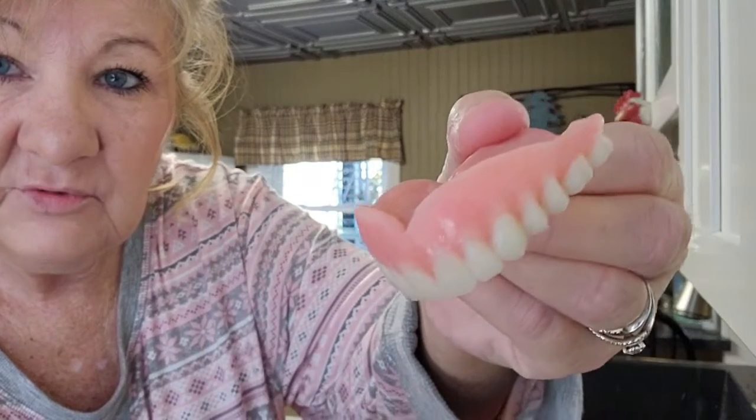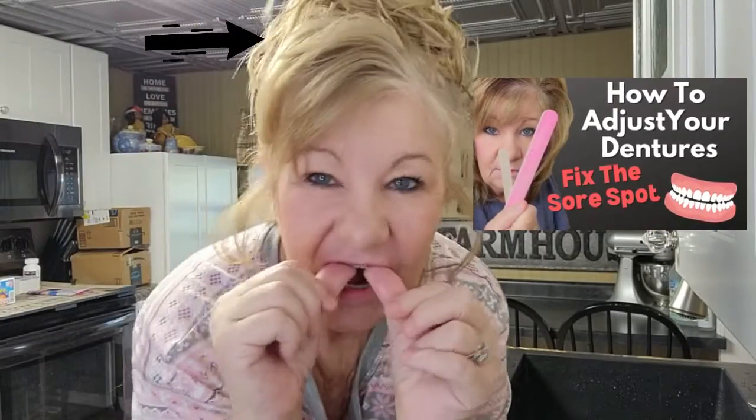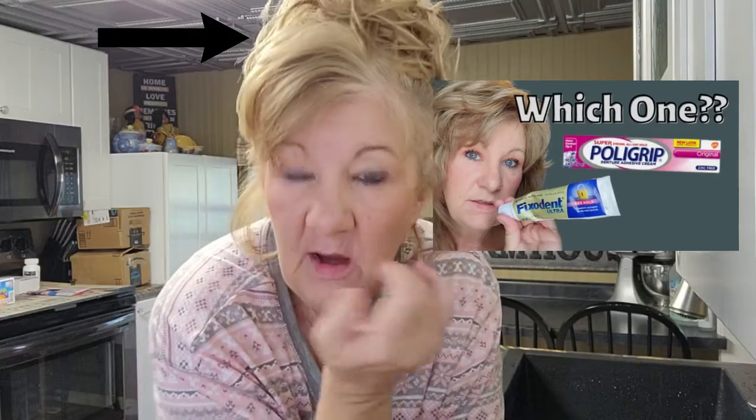Can you tell a difference? Because there is a difference. There is the dog. I'm not using any denture paste right now, so they're probably not going to be secure — I know they're not going to be. But they're not as slimy up there. That's creepy. I can't talk without denture paste; that will help. And throughout the day, if you notice they're getting kind of slimy up there, just take a little soft toothbrush or a Q-tip — whatever you want — and rinse your mouth out. You'll notice that your dentures are slimy throughout the day.